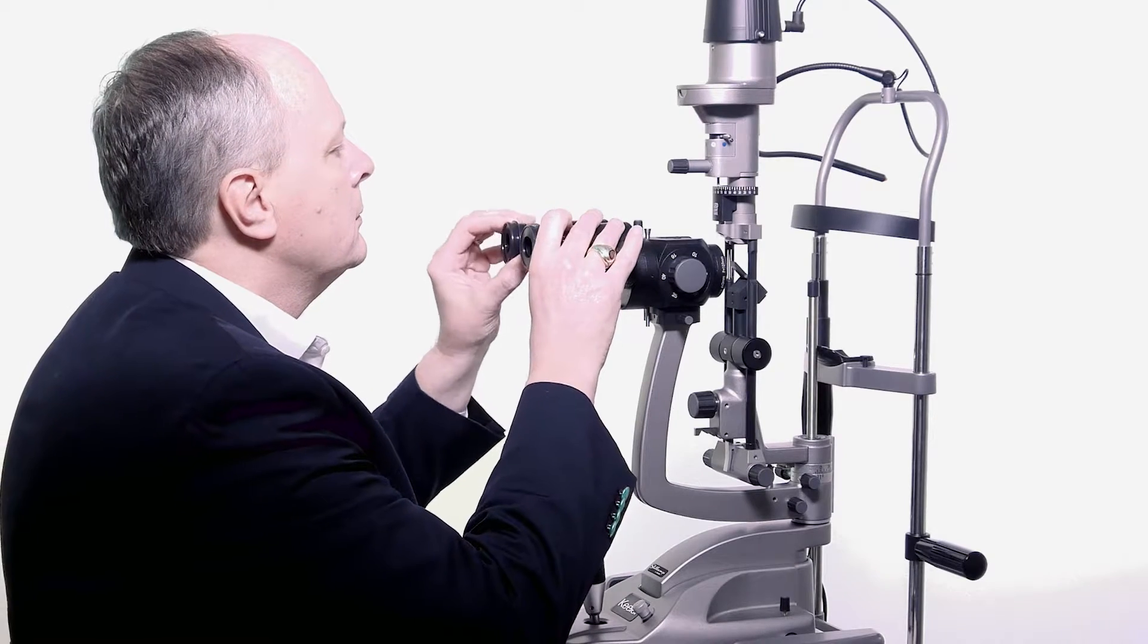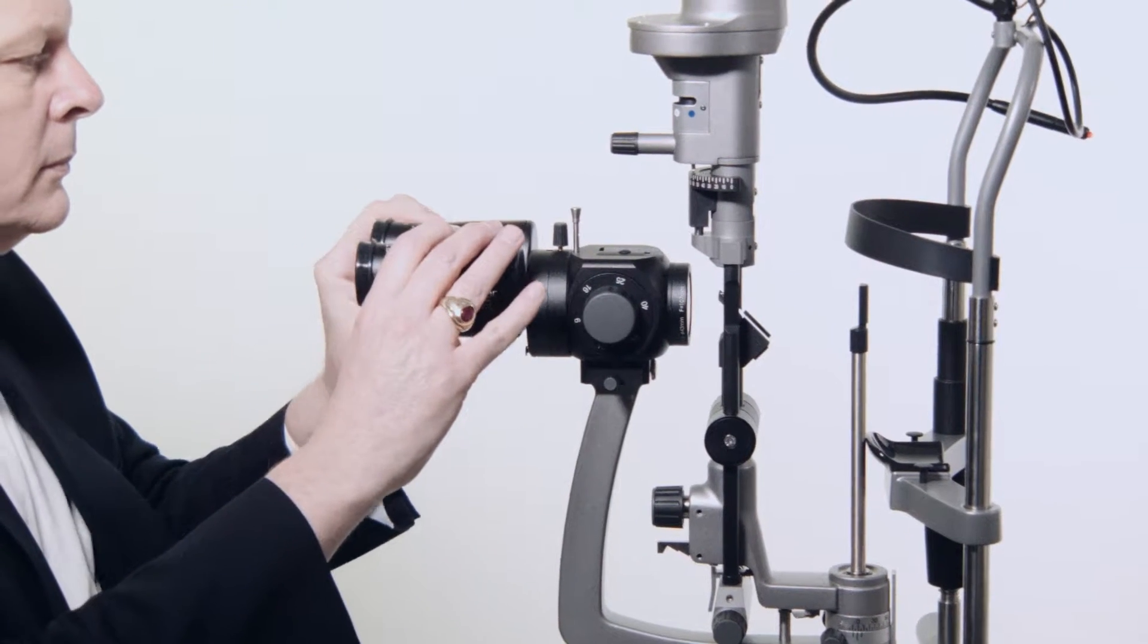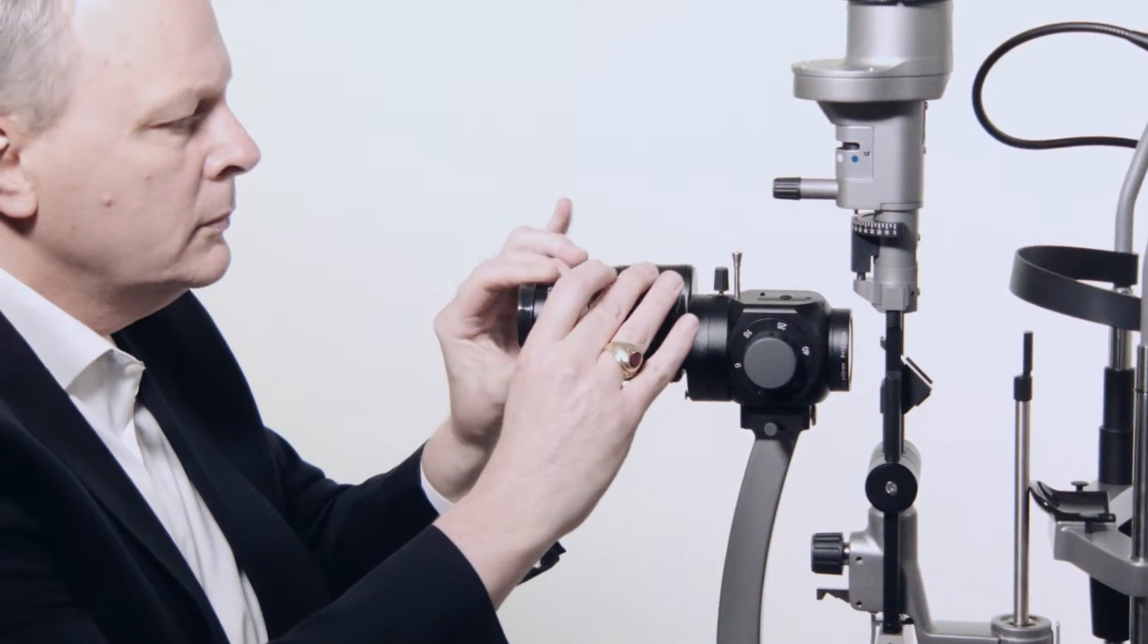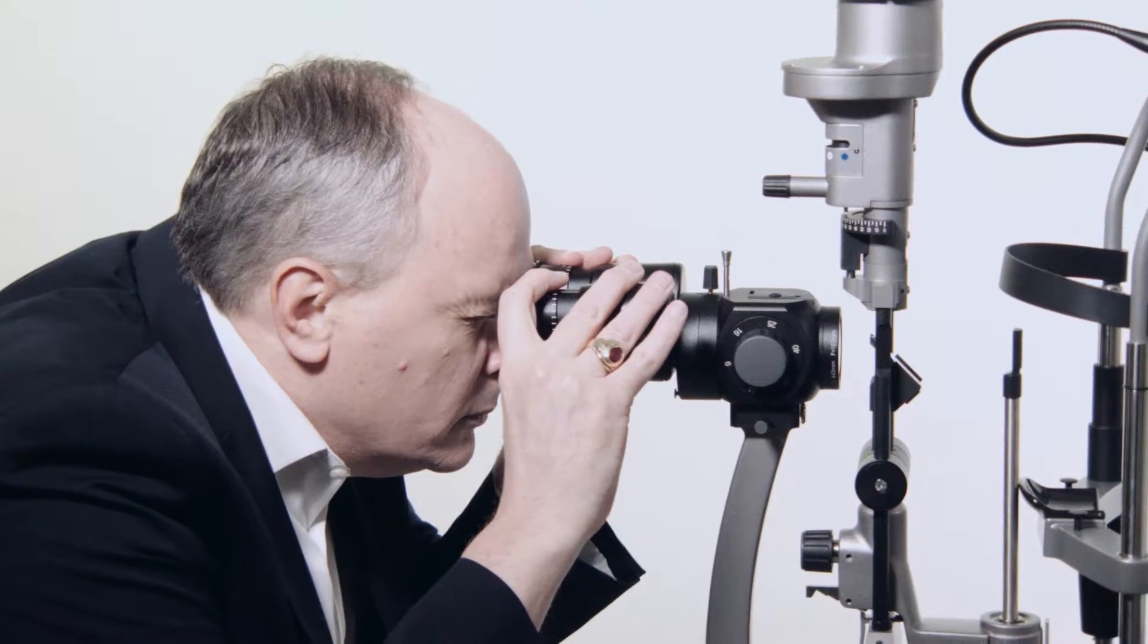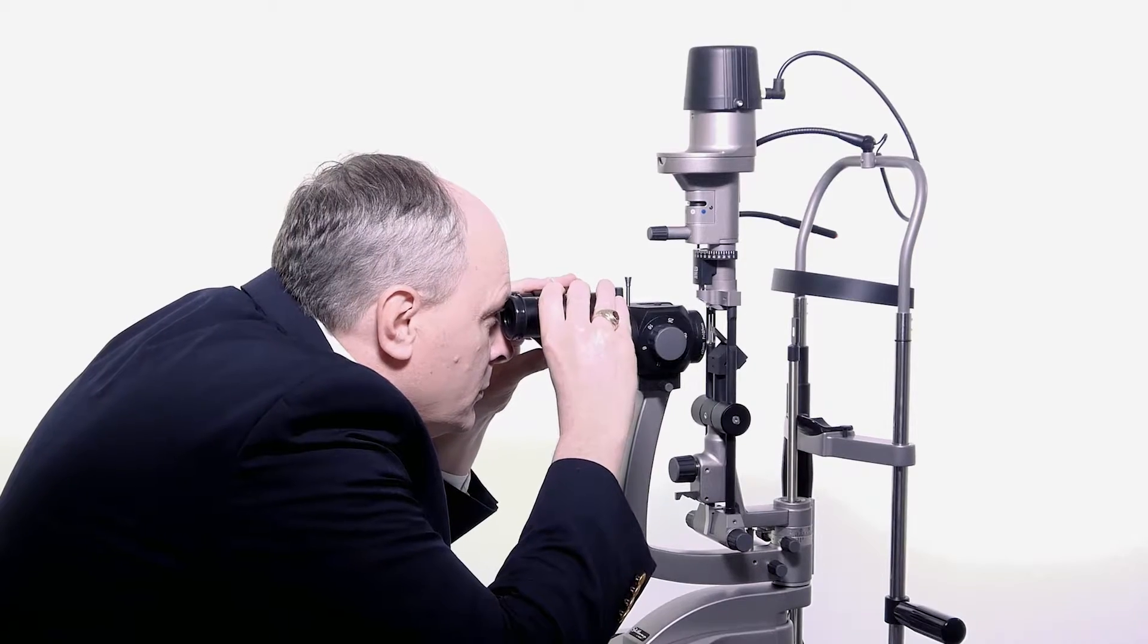Before using the slit lamp for examination, adjust the eyepiece's pupillary distance or PD. The PD ranges from 49mm to 77mm.